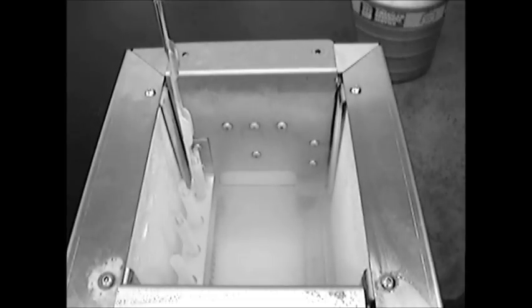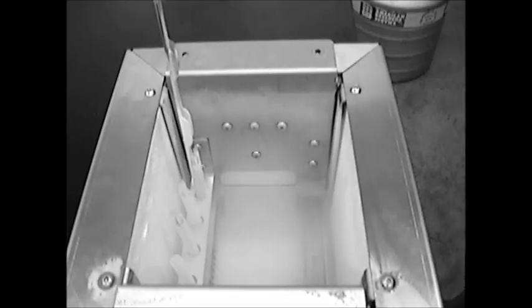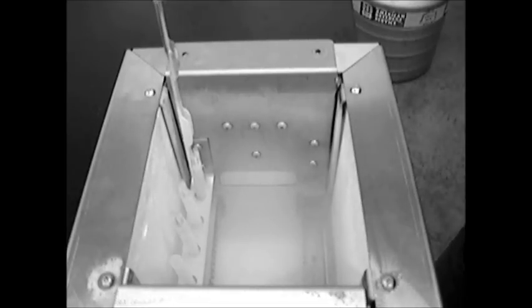The goblets are sitting in the vapor phase and the specimens are all nice and chilled. The next step would be obviously to take this and put it in the nitrogen tank for long-term storage.